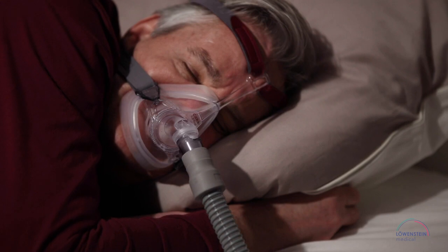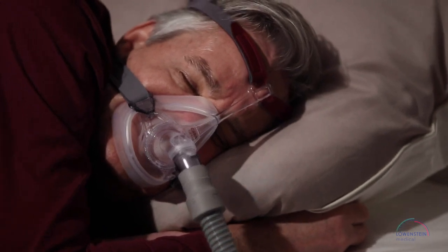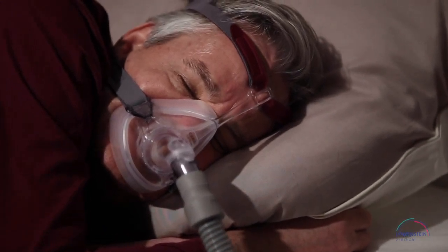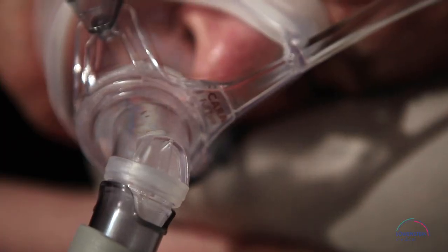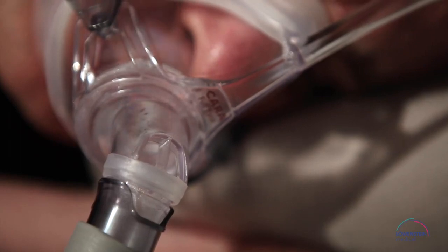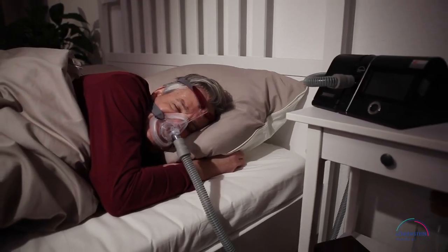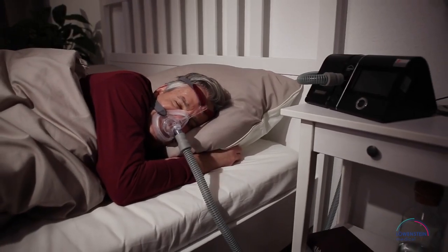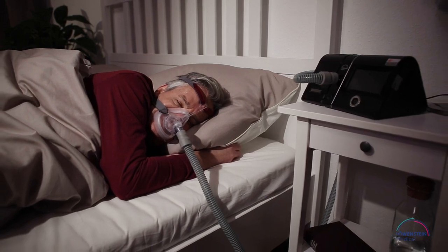If for any reason the device fails during the night, the anti-asphyxia valve is activated. It reacts immediately and frees up the small opening in the elbow. You can continue sleeping undisturbed and safe and inhale sufficient amounts of fresh air.